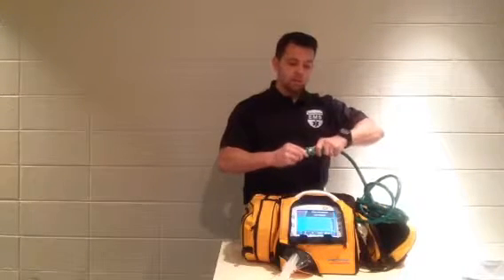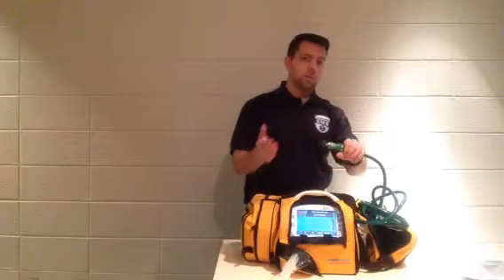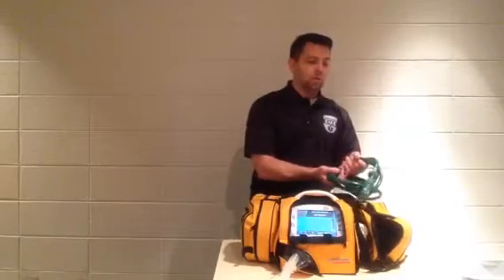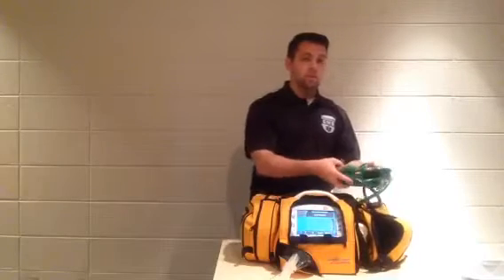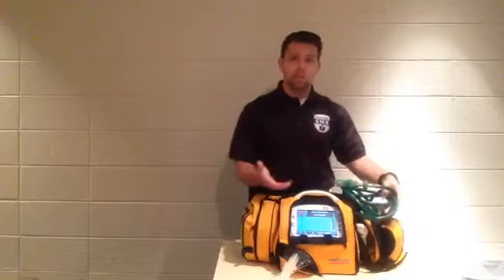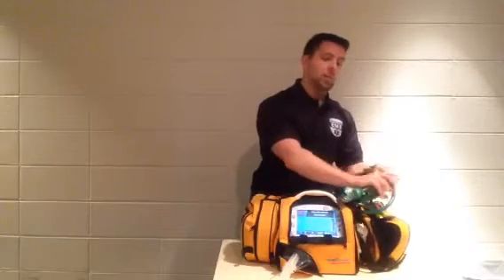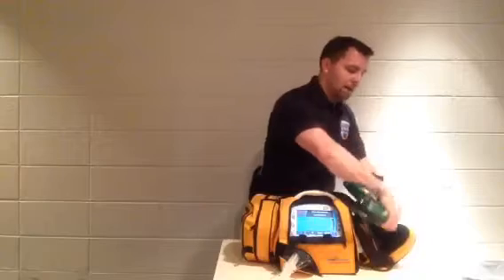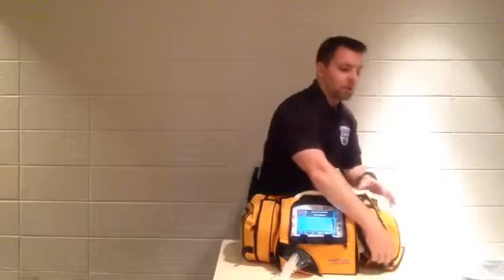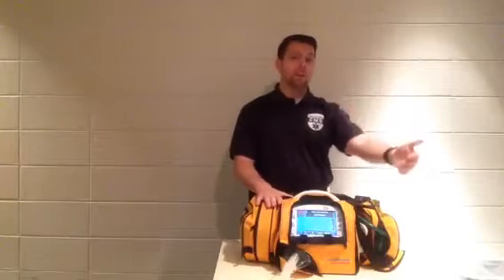The ambulance cylinder time simply means that you need to be aware of how much oxygen you have on the back of your stretcher, plus how much oxygen you have in your main, and how much you're going to burn through for the transport. There are oxygen calculators that can be utilized for very long transports. This one has an internal one, so it can sense the pressure, but it doesn't know the size of the container. So very simply, for the internal calculator here, you would put in what size bottle you're using, and then, through the 50 psi line, it's going to automatically sense how much pressure there is, and it's going to calculate based on normal usage how long that's going to take you.